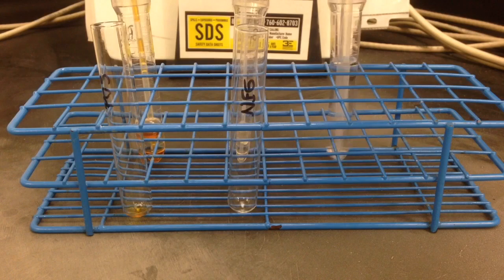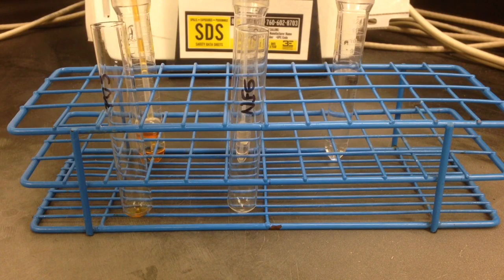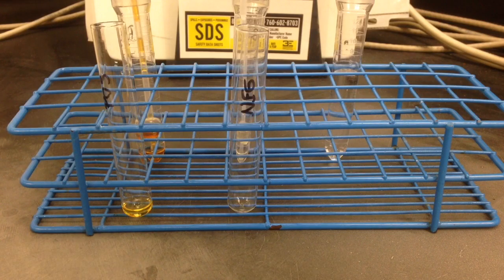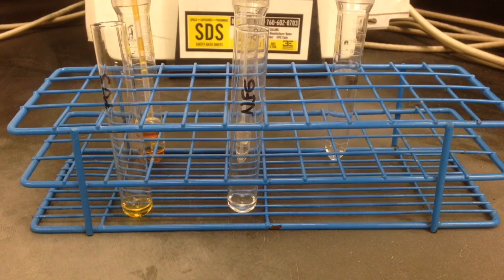And then you further add ten drops of water to each specimen. Now, the two-drop method can detect up to a higher amount of reducing substance in a sample.